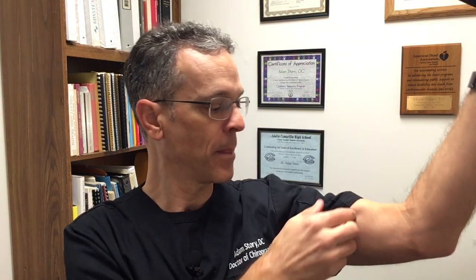I'm going to show you the features. The great thing about this is it's, number one, an EKG machine or an ECG machine, depending on where you're from, as well as a blood pressure cuff. It is so simple to use. You just take this and put it where the blood vessel is on the inside of your arm. You want to sit down, relax for about five minutes, keep your feet on the ground, and prop your arm up so it's about heart level. Pull your sleeve up so there's nothing restricting your artery.